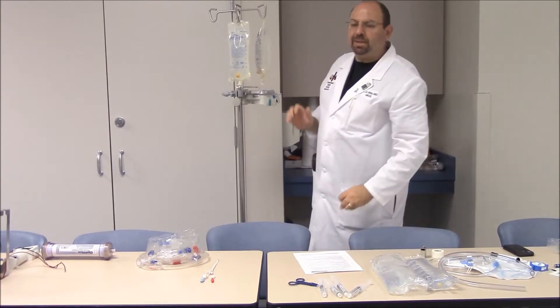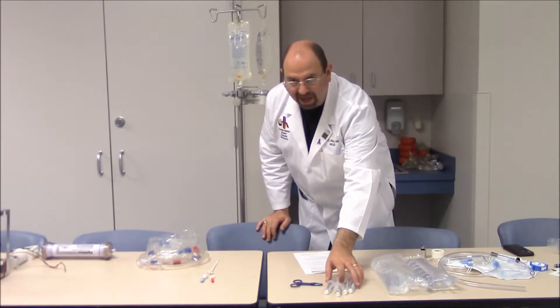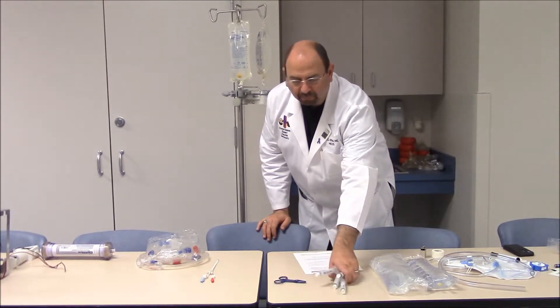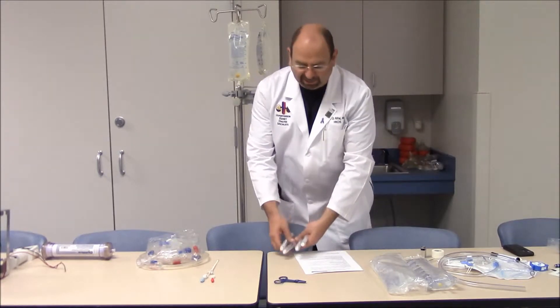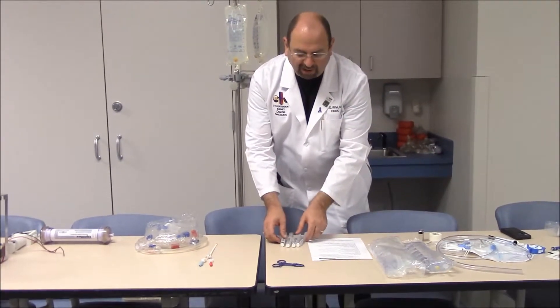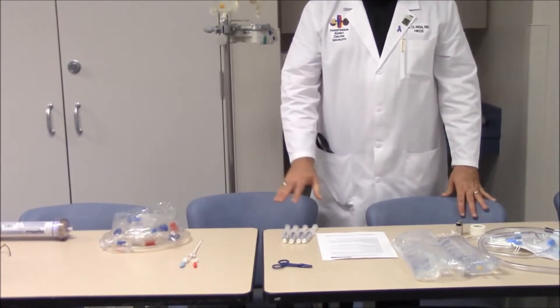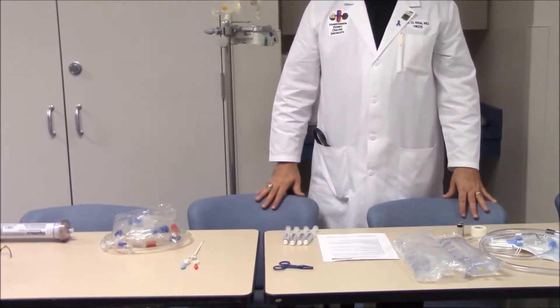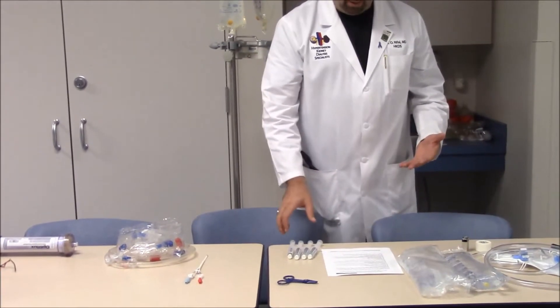The third item needed is syringes. We need four sterile IV syringes, handy and ready. They don't need to be filled with fluids beforehand, but they need to be within reach when we start priming.